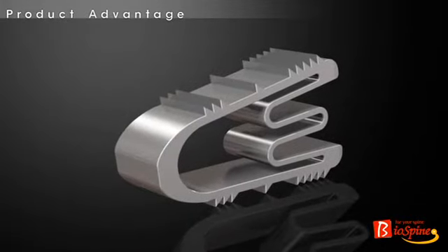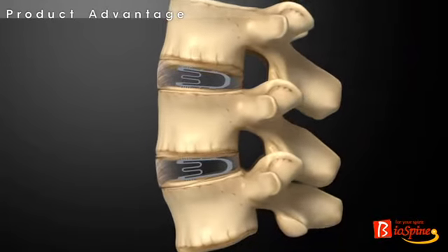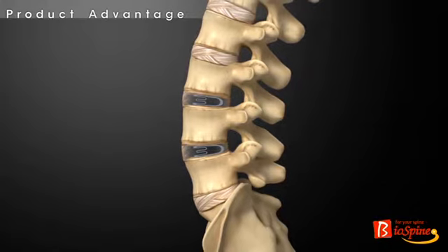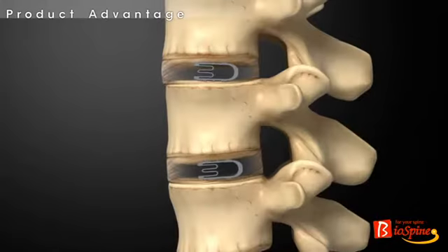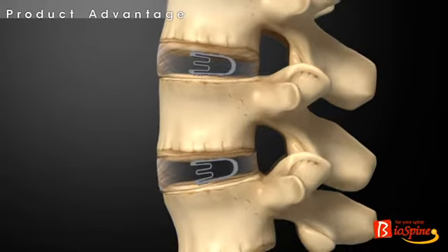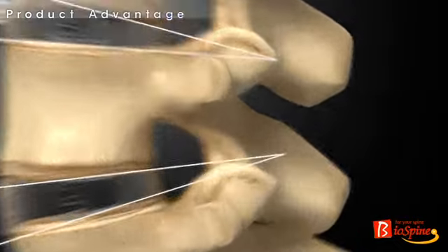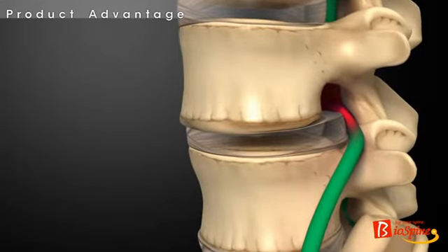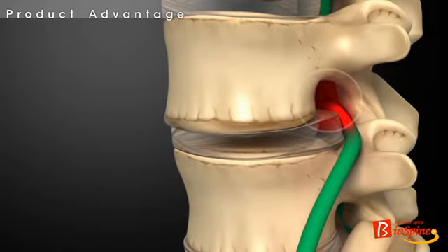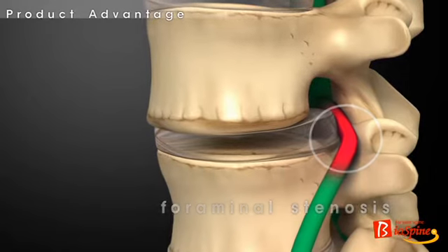As the fundamental role of a cage, the flexible cage system can recover the height of the intervertebral disc and achieve natural angulation of the intervertebral disc. In particular, in order to be applied to disc height and angulation that differ according to the condition of patients, the flexible cage system has various sizes in height and angulation. As a result, by opening the lateral foramen sufficiently, it can be used effectively for such typical indications as spinal stenosis and foraminal stenosis.